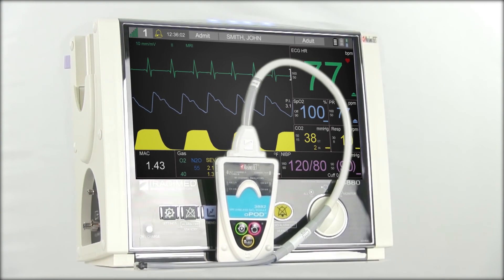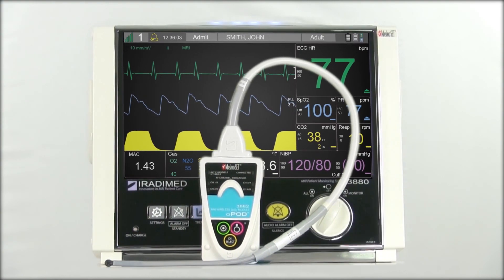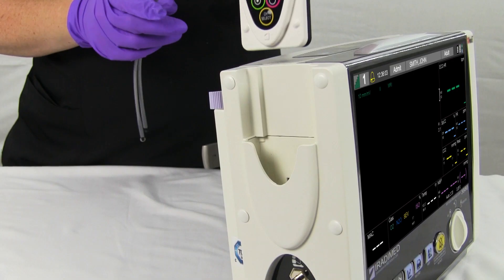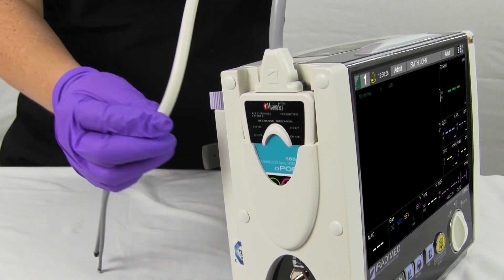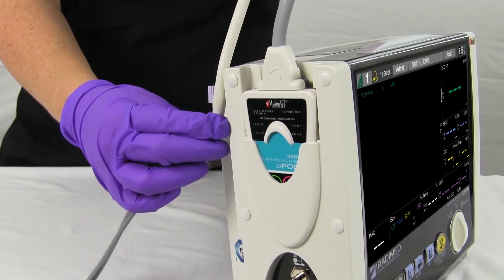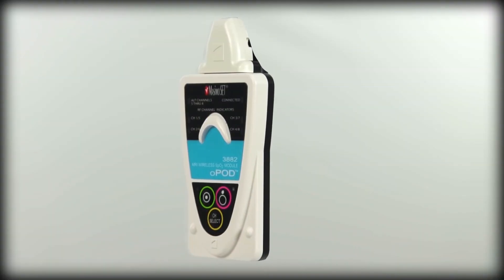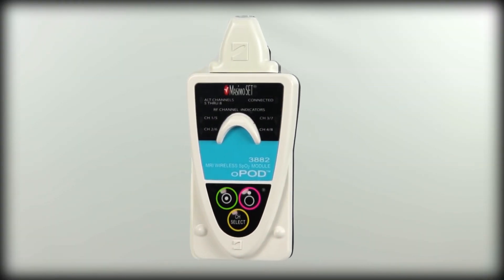When not in use, store the O-Pod in the charging dock on the patient monitor as seen in Video 2. Be sure to tuck the fiber optic cable inside the clip located on the reverse side of the monitor to avoid damage. The SpO2 O-Pod is now ready for the next patient.